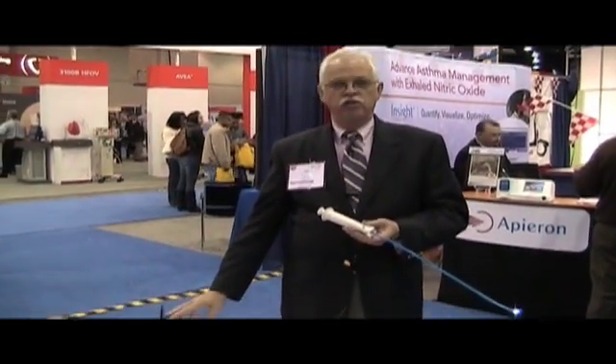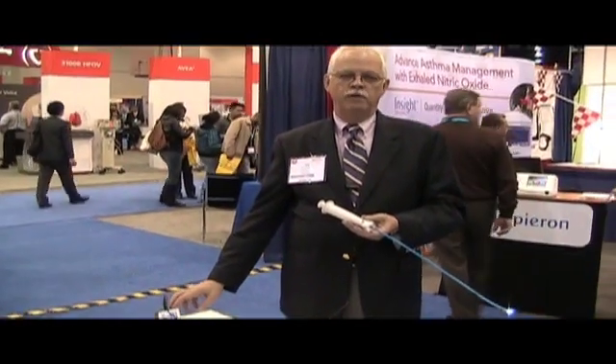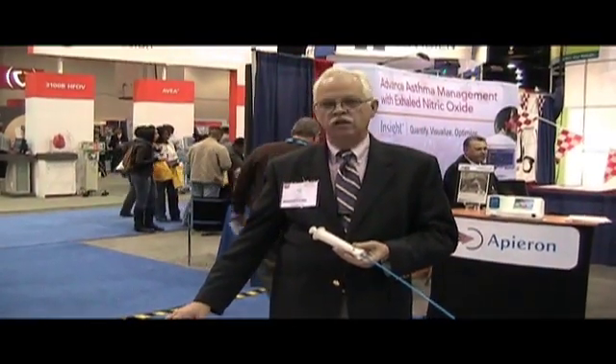The Intubate Flex is designed for single patient use and consists basically of just two parts. The monitor, which is designed as battery powered or it can be run off the mains, off the electricity. We will have a larger monitor, a three inch monitor in about four months.